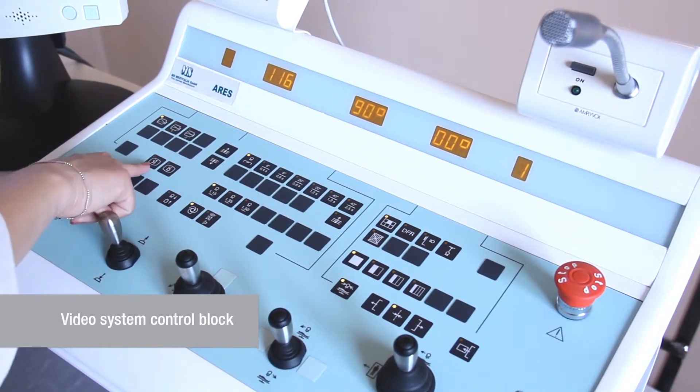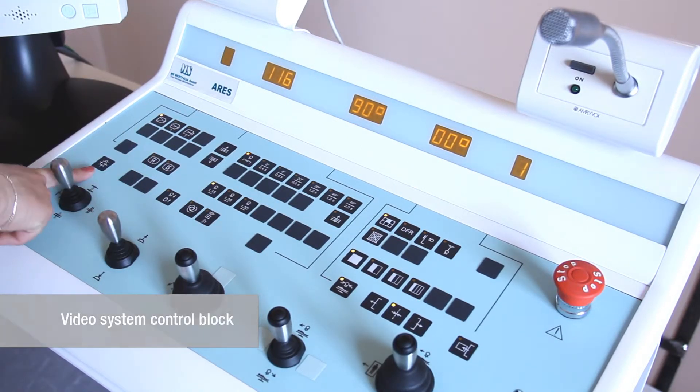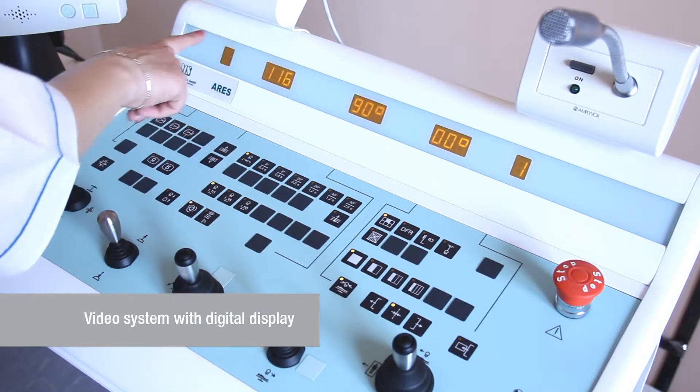Image inversion control, a collimator light switch. Image shot frequency is displayed on the panel as well.